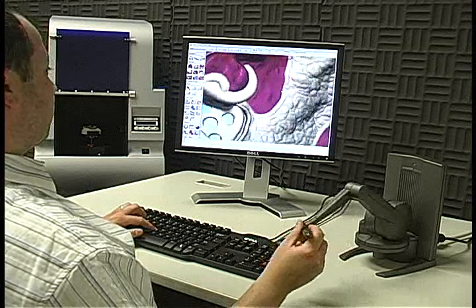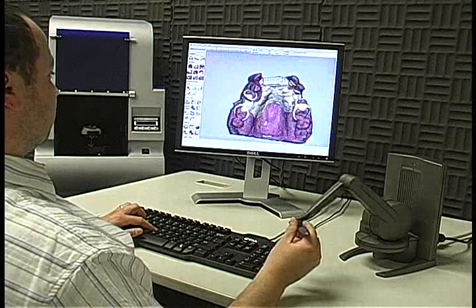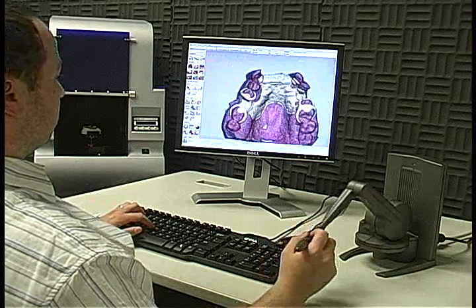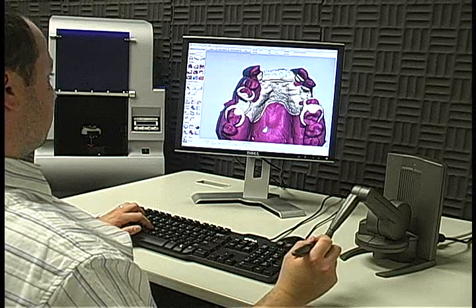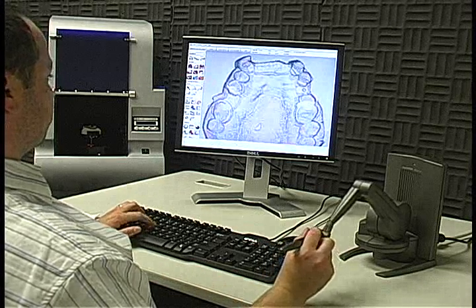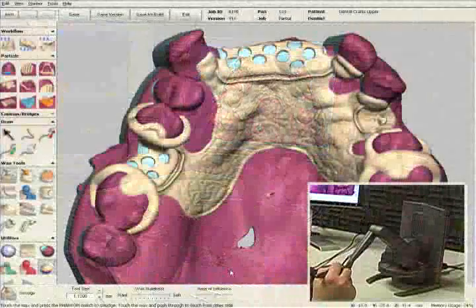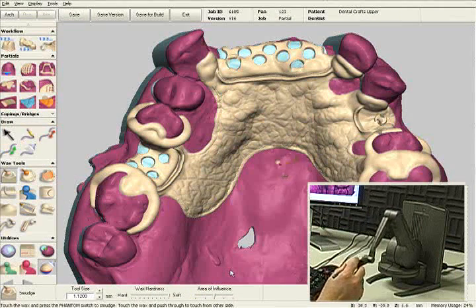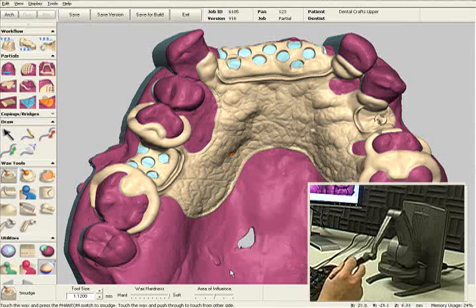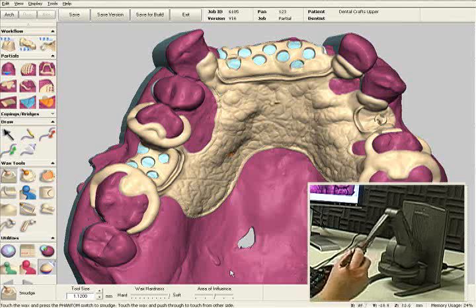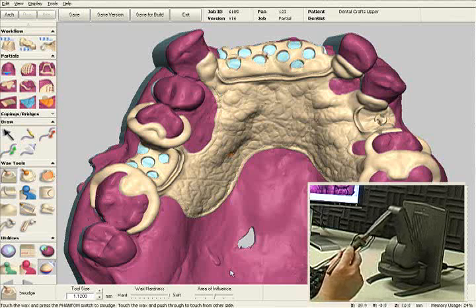This particular partial took me approximately 17 minutes to survey, design and wax. Now let me just quickly explain what you see on the screen in front of you. This purple color here, that's the digital refractory model. This beige color, that's the digital wax. And this blue color, that's the relief wax underneath the mesh.